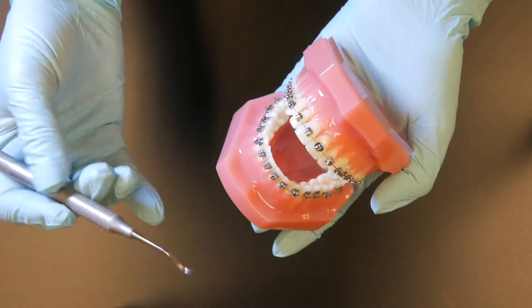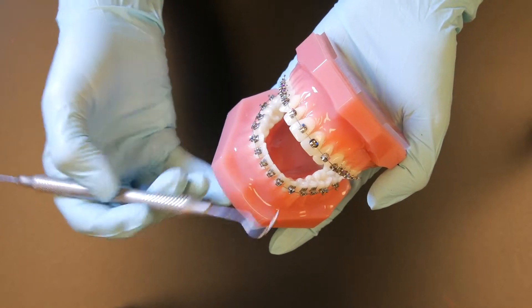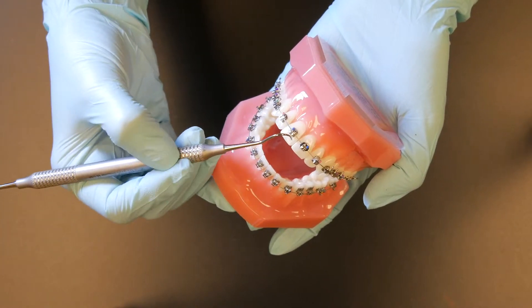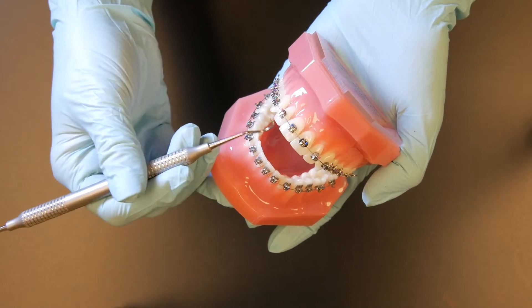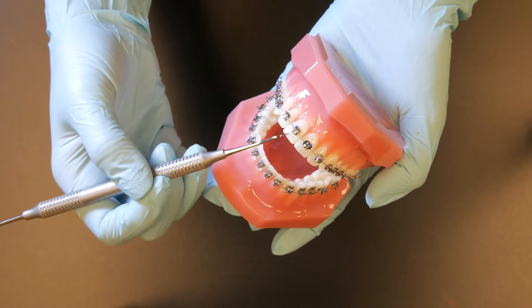What I like about this bracket is that it has a thermal NiTi clip that extends the width of the bracket. That helps with any rotational control throughout treatment. It also may prevent any wire notching or nicking and any clip deformation.